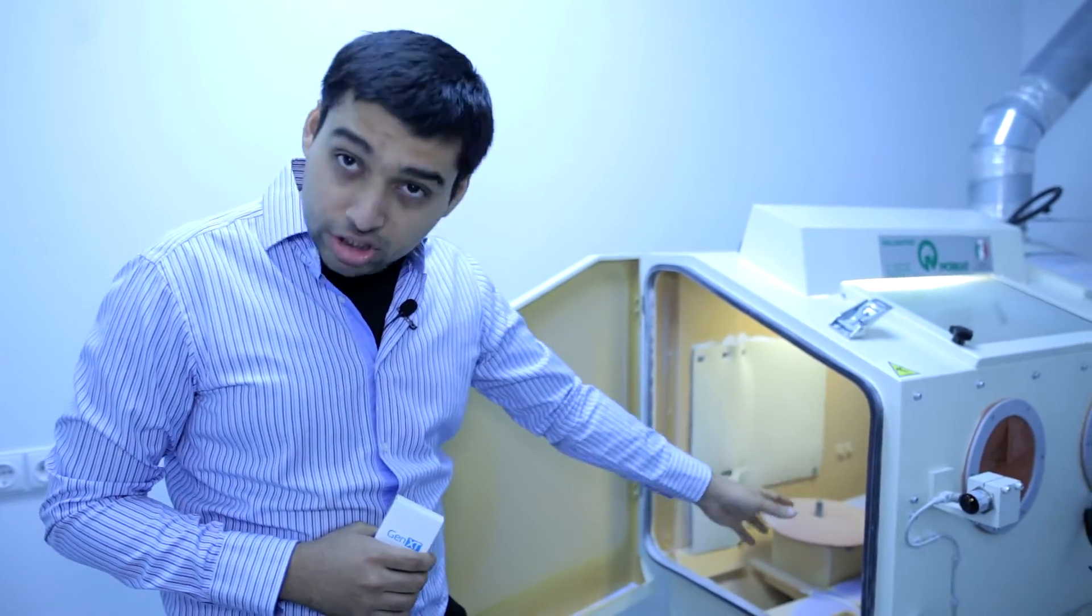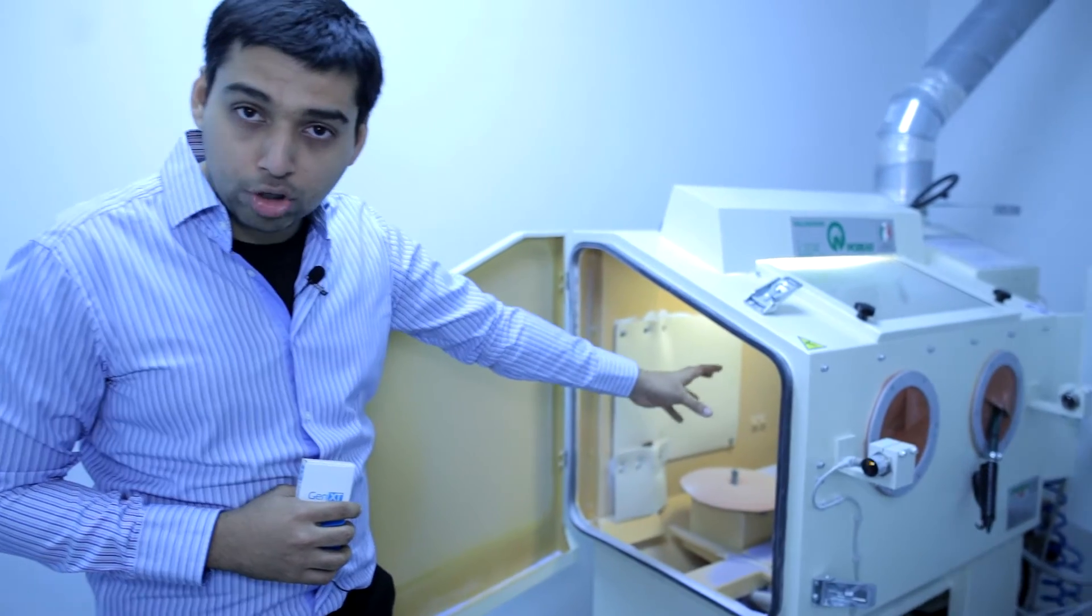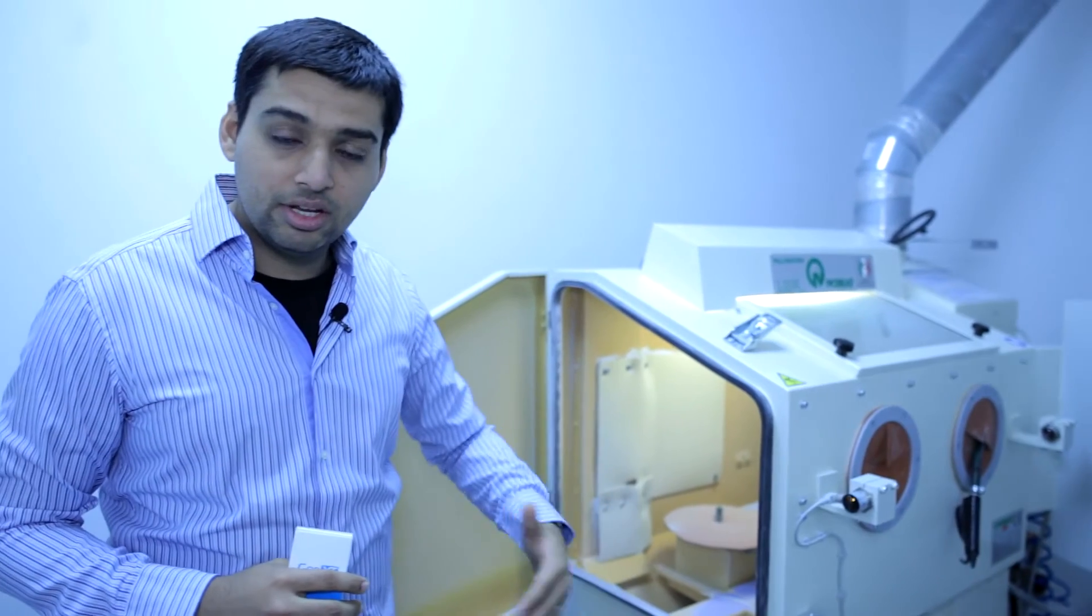They use hydroxyapatite as the resorbable blasting medium and there are the pressurized pre-positioned automatic jets and the table will take a few rotations for about one minute and there will be an automatic sandblasting of the process. So you can be assured that every implant surface is sandblasted to the same optimal quality.